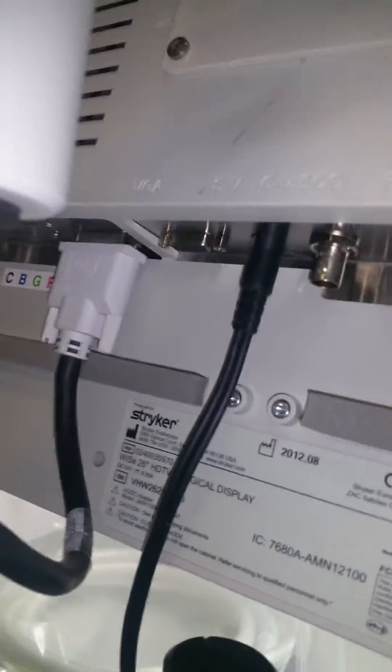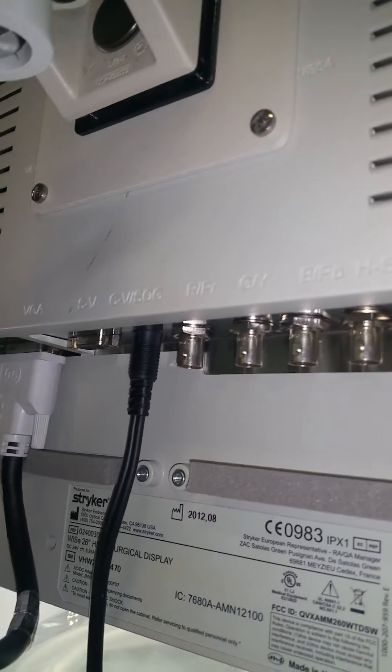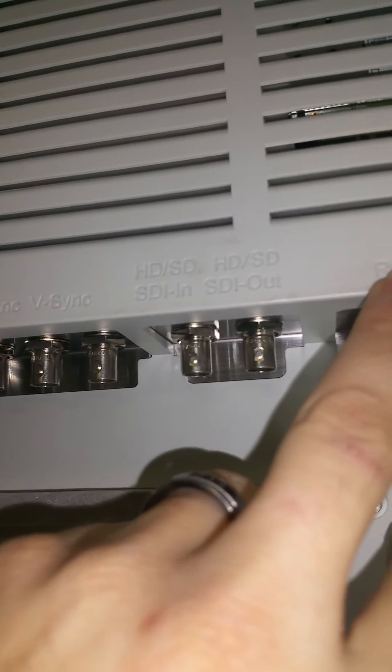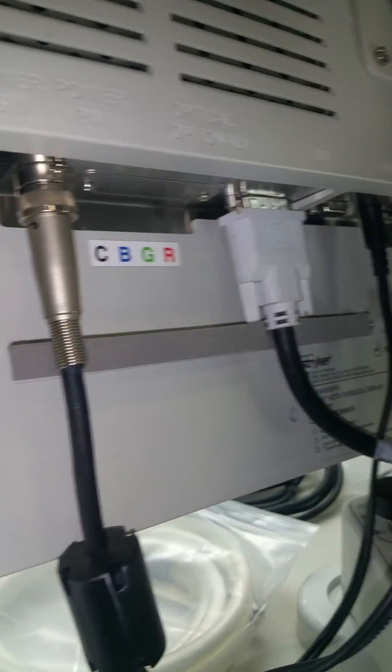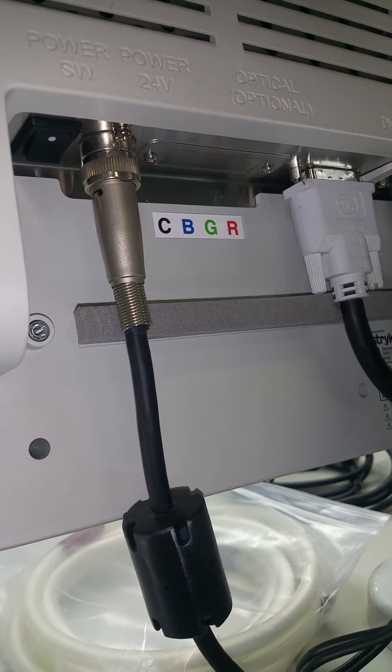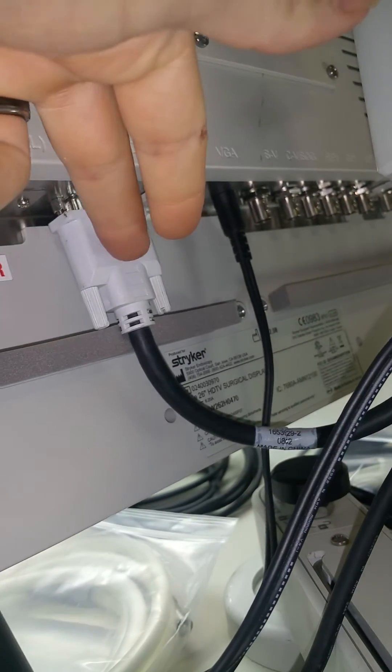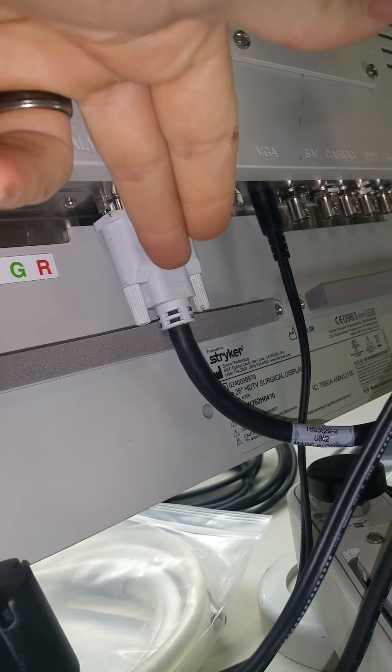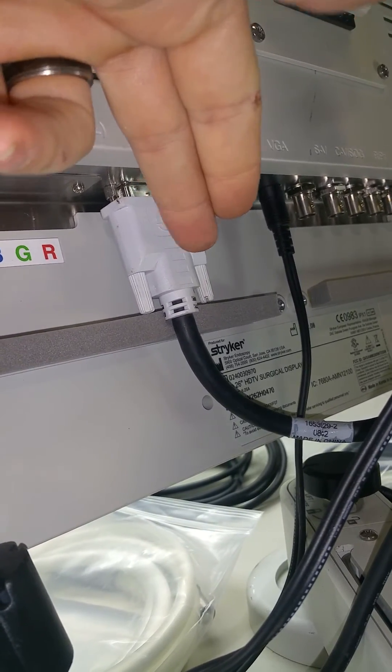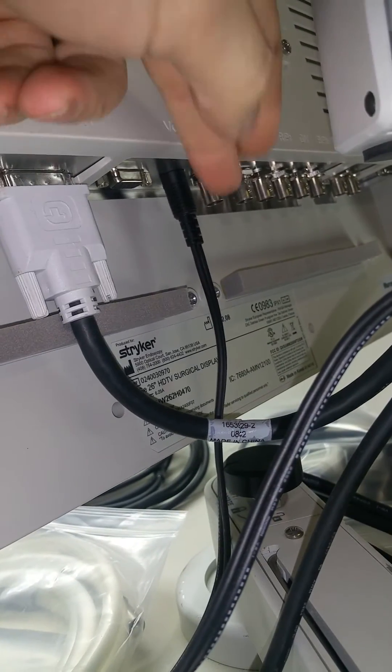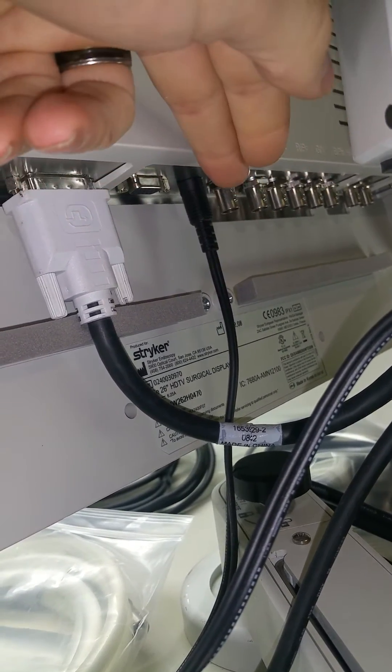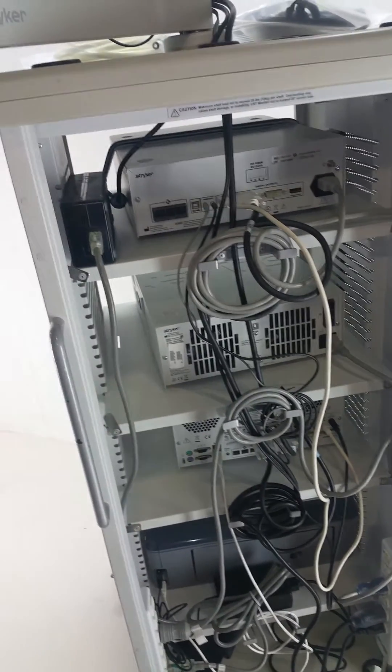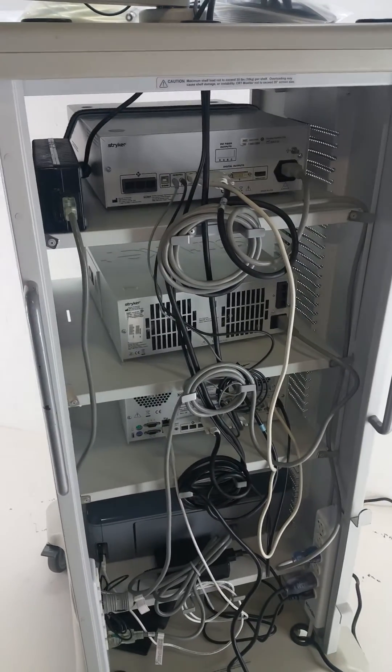So your SDC, everything from it, your outputs from the SDC come up to the back of your monitor. The back of your monitor has these labels for all of the inputs here on top. So currently, the only things that are plugged into the back of the monitor are the power cord here, the DVI cable, the digital video cable, and that's this right here. And remember that's coming from the output of the SDC. And then also the S video, which is this cable that is also coming from the SDC.